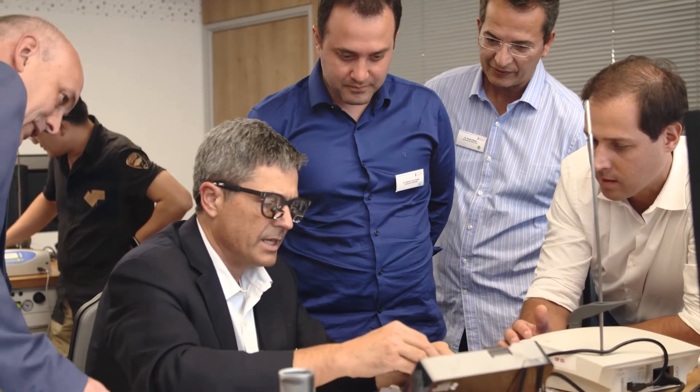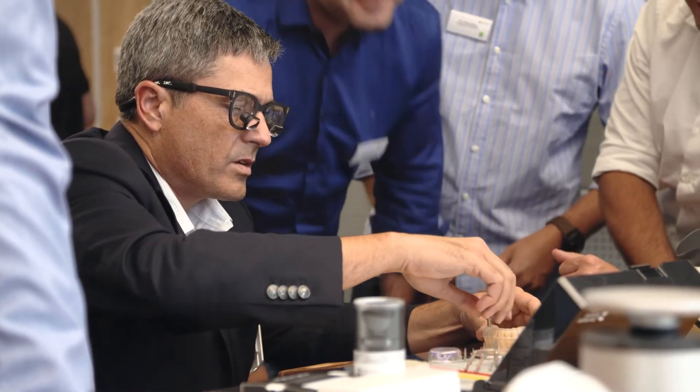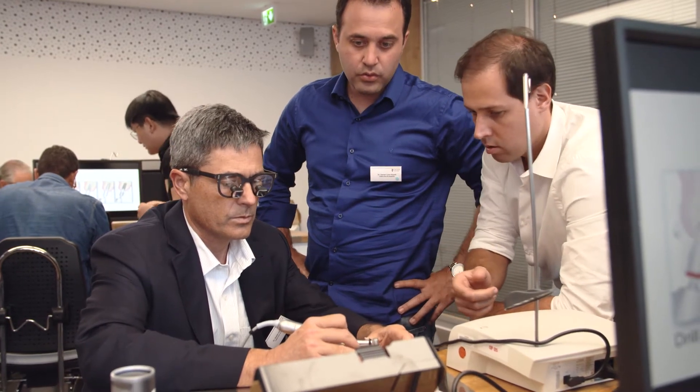Actually, to me, it was like natural. I know that for the persons that are working in the conventional mode, it's quite hard to use. But for sure, with this new software, with this new kind of approach to design the teeth, it will be more and more easy to start to make restorations, make crowns.